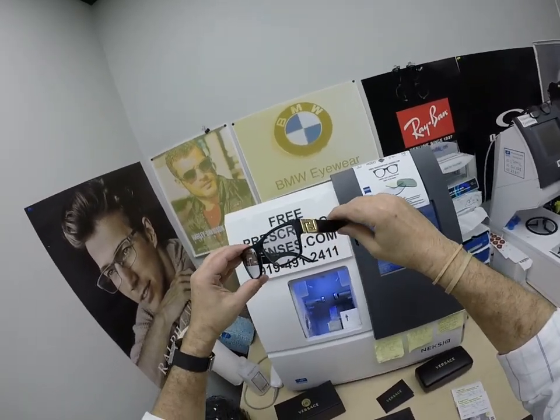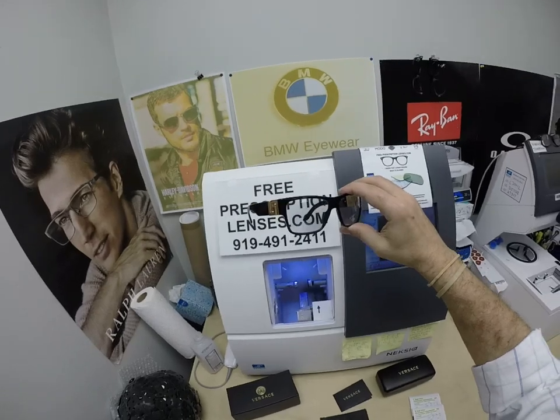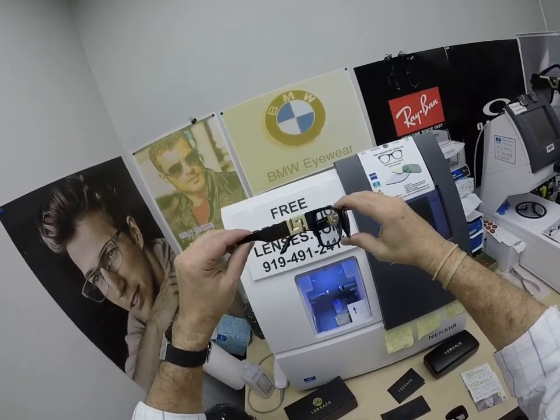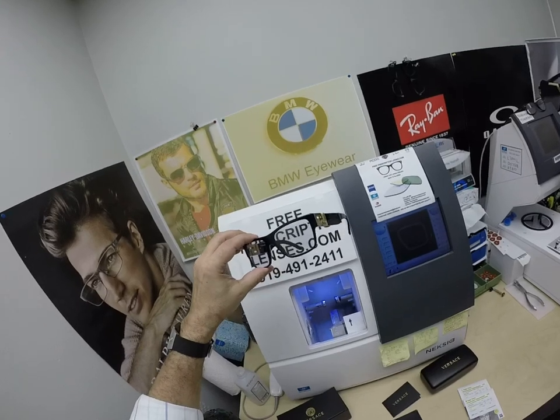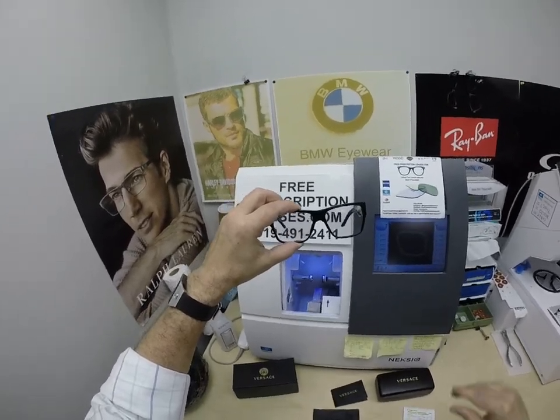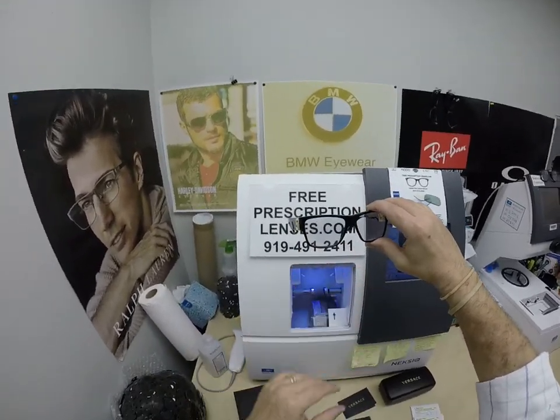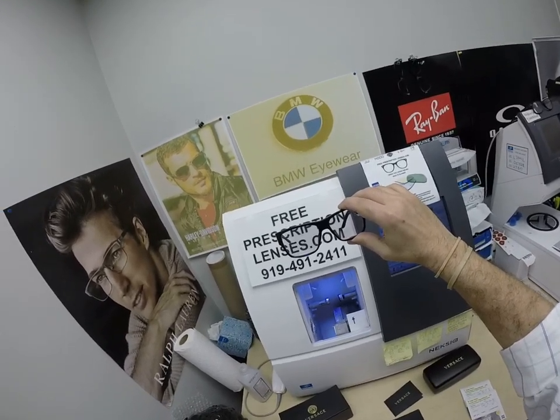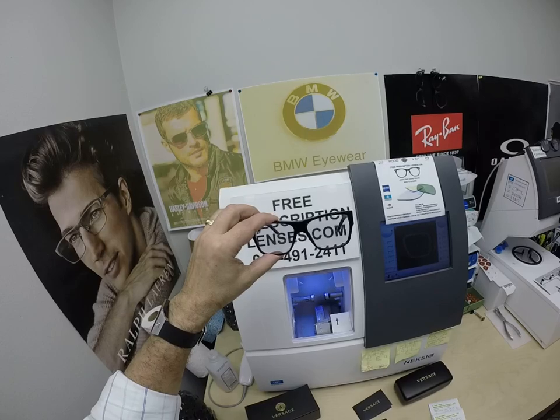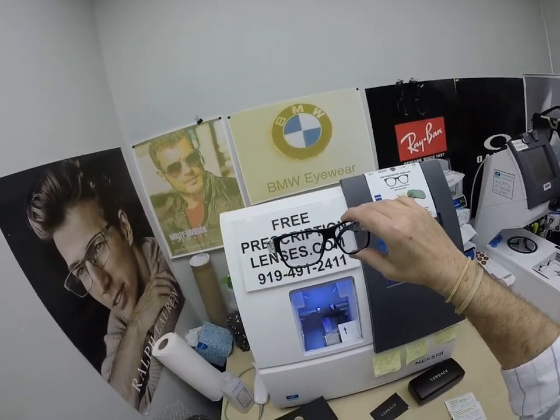You can also leave a question or comment in the comment section below. Will, in Clear Springs, Maryland, thank you for the purchase of your fourth pair from me in the last month. I appreciate you helping support a small independent optician — it helps me compete with the corporate giants. He ordered a Ray-Ban 2140 Original Wayfarer with Photofusion Blue. He already had clear lenses but wanted to upgrade. Then he bought the Ray-Ban 2140 in color 1296 — the red and transparent gray — with Ray-Ban G15 lenses. He bought a pair of Coach sunglasses. Now he's got this pair.